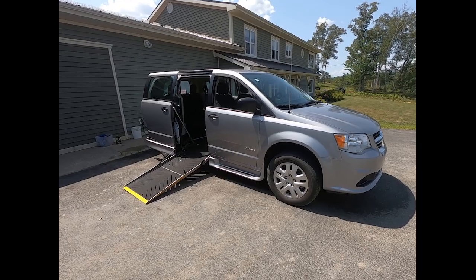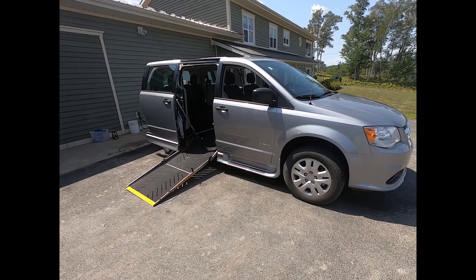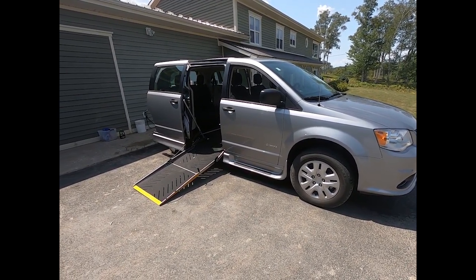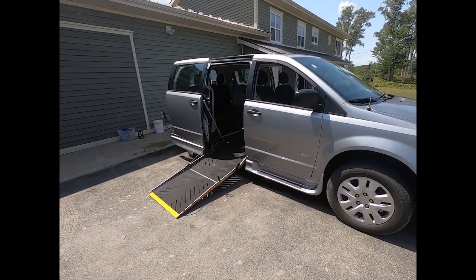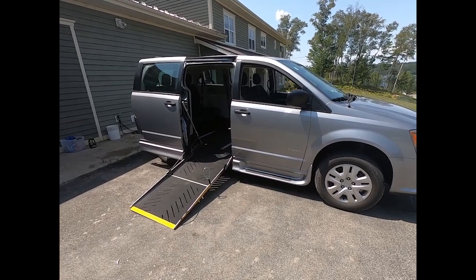This client is a little bit what you call old school. He isn't big into electronics, likes real things, simple as can be. His concern with electronics is he wants to be able to fix it himself in his driveway 20 years down the road.